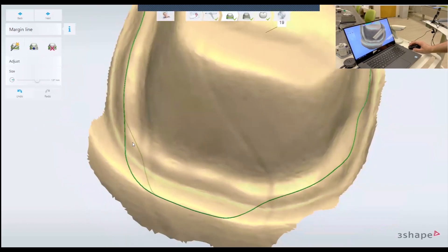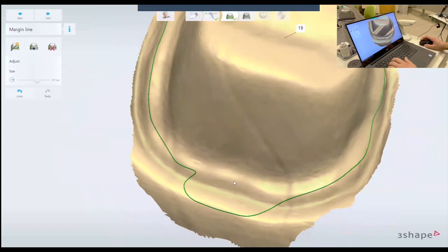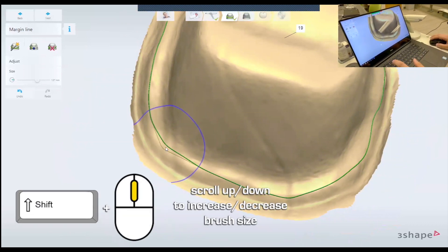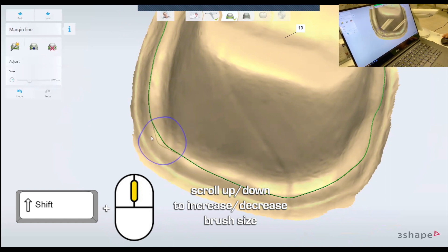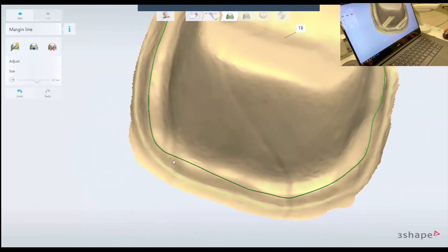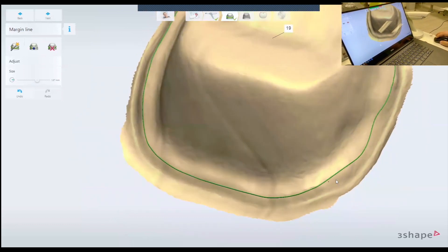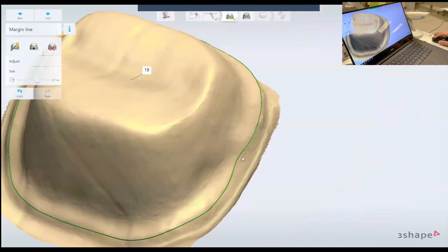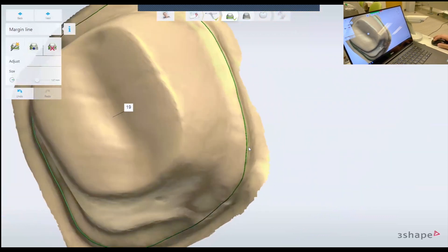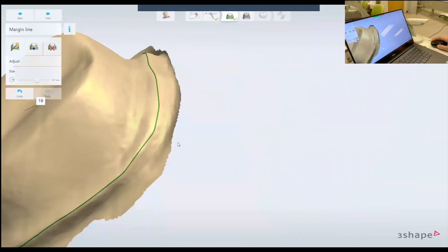At this stage, we're going to refine the margin — click on the margin area here. One thing is that you see the brush size is big. If you click Shift, you can decrease or increase the size of the area that you're adjusting on your finish line. I like to slightly over-extend; that way if something is a little bit over in the clinic, you can adjust it. It's easier to subtract or remove from the margin than adding later.